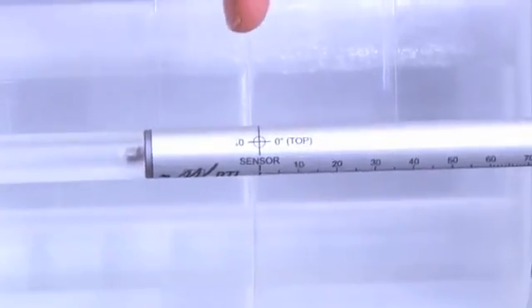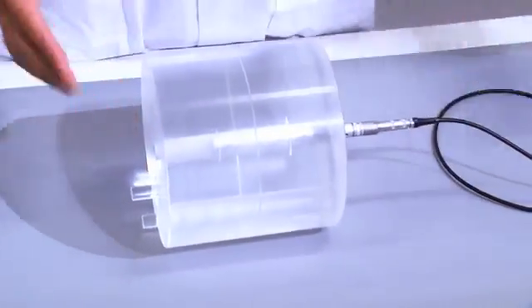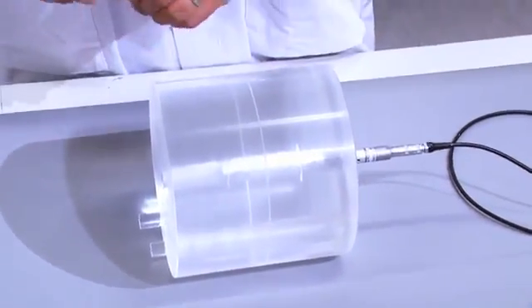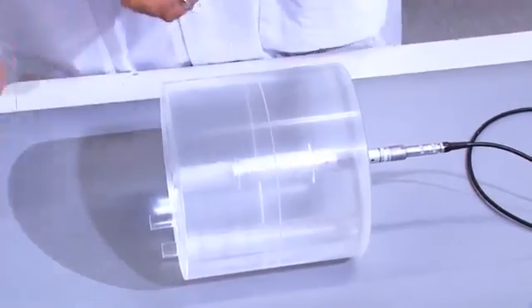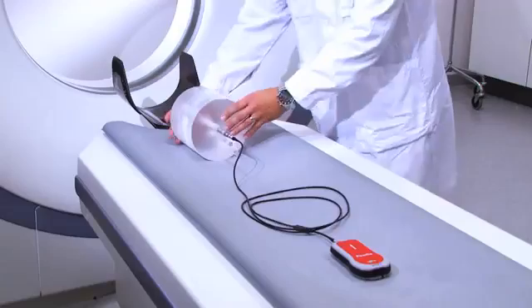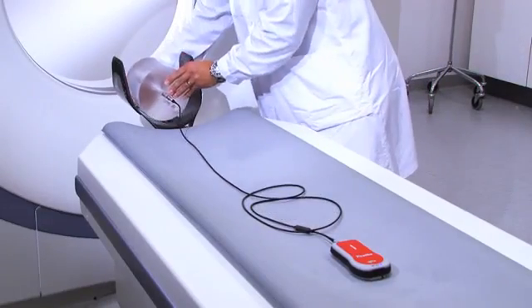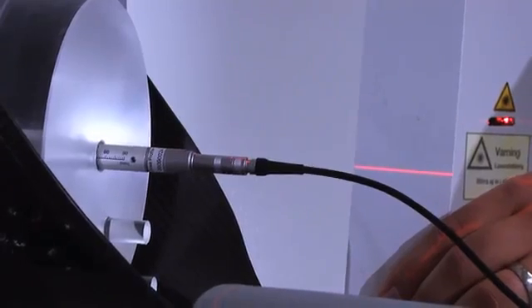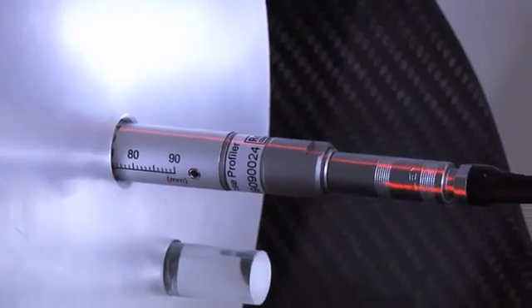The detector should be placed in the central hole and the detector sensor should be centered. Make sure that the detector doesn't move during the exposure. This can be done by fixing it with some tape, for example. Align the phantom with the lasers so that the CT dose profiler is in the ISO center.